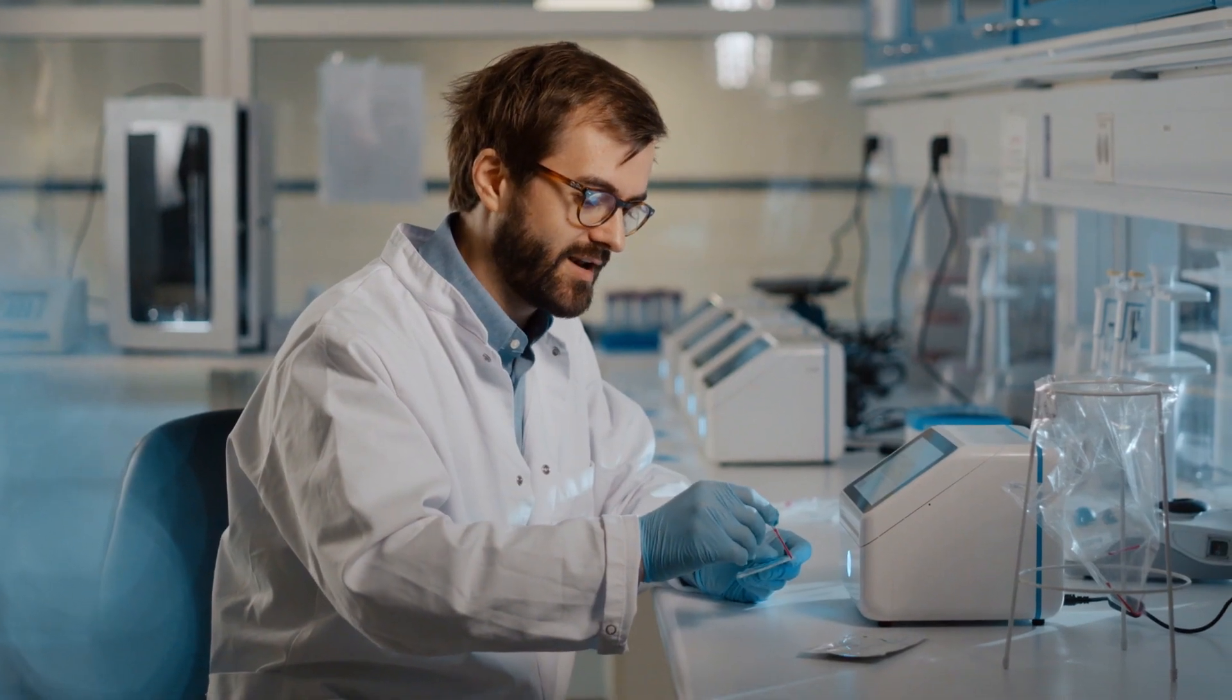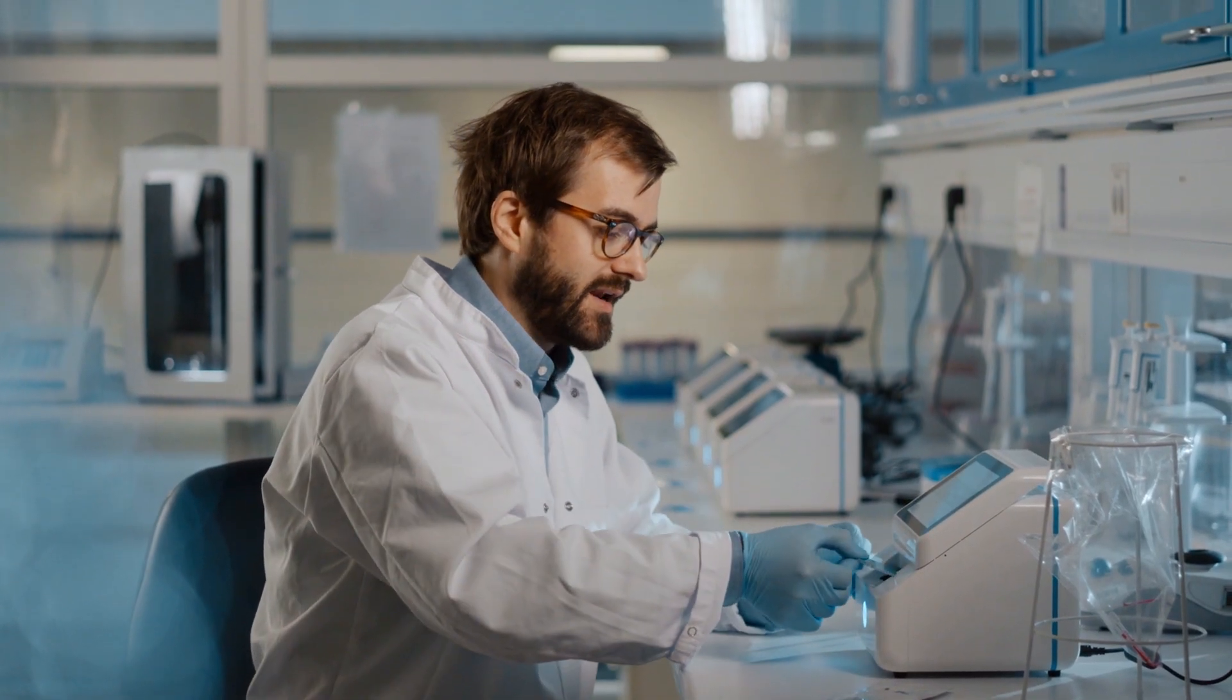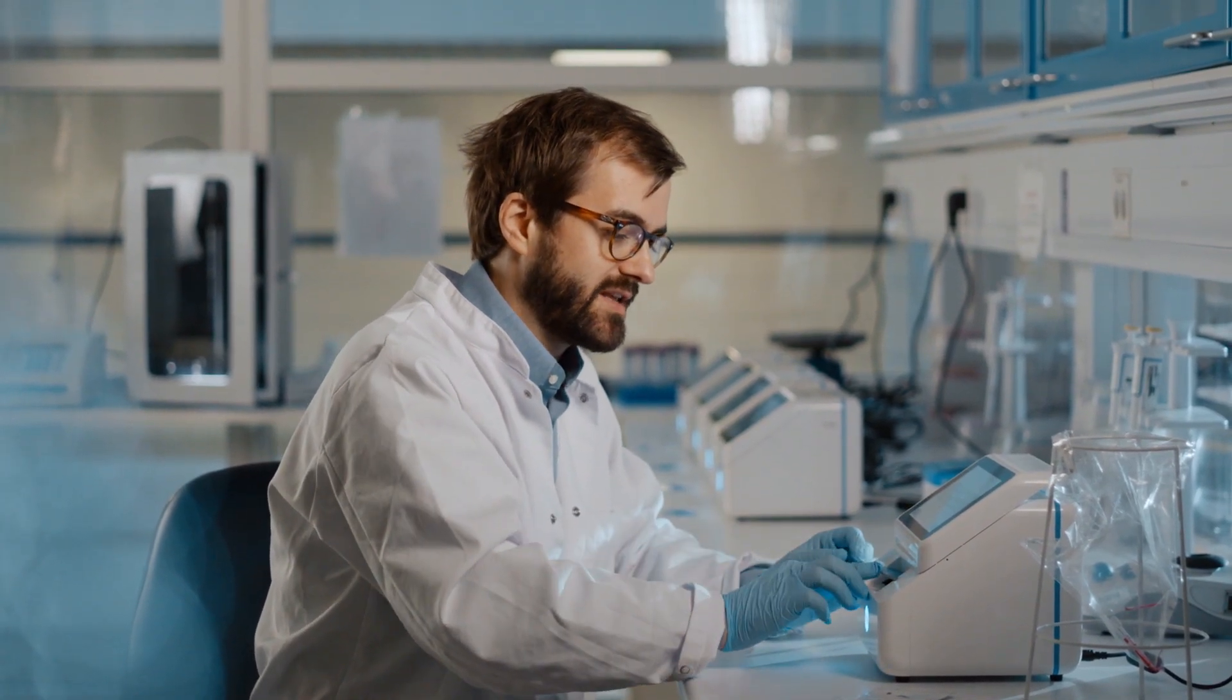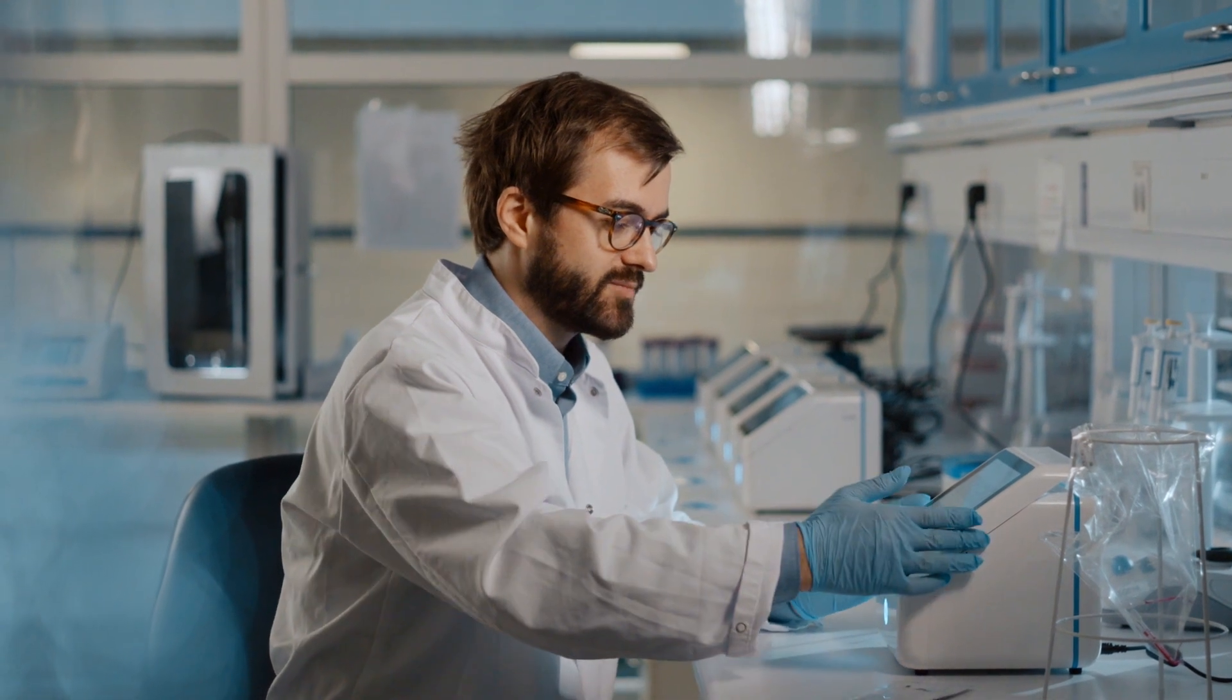All you need to do is put a drop of blood into the cartridge. After opening the blue box, the cartridge is inserted into the device. In around 10 minutes, the result of the analysis will appear on the screen.